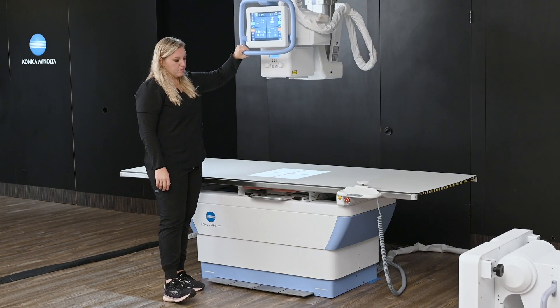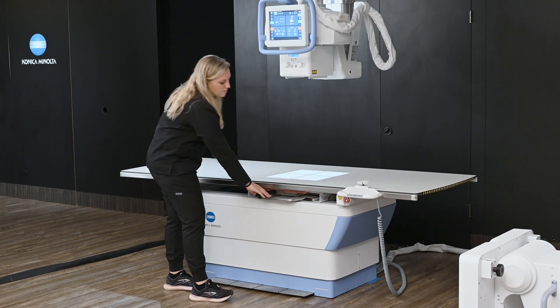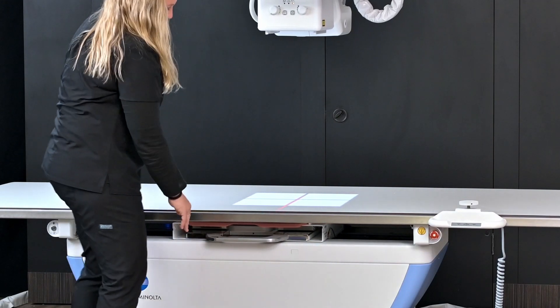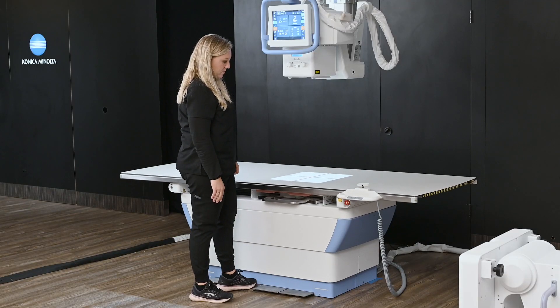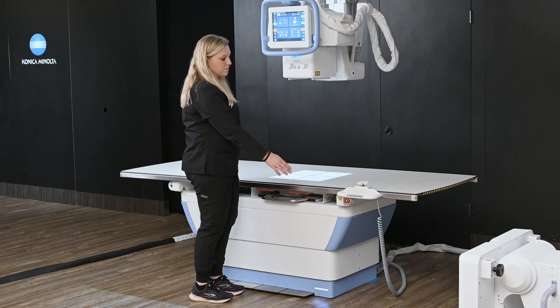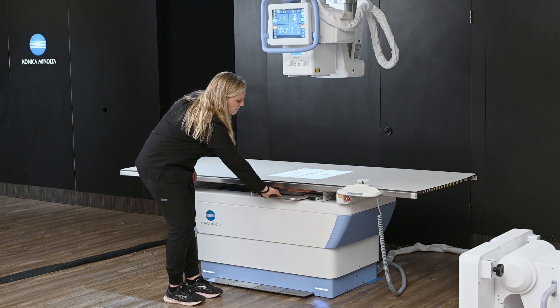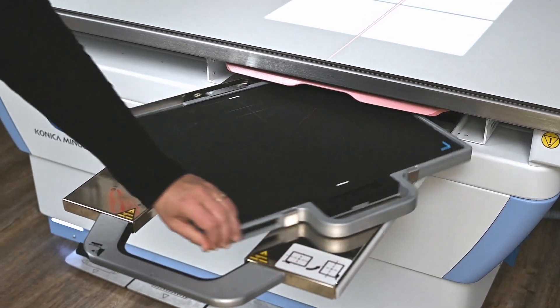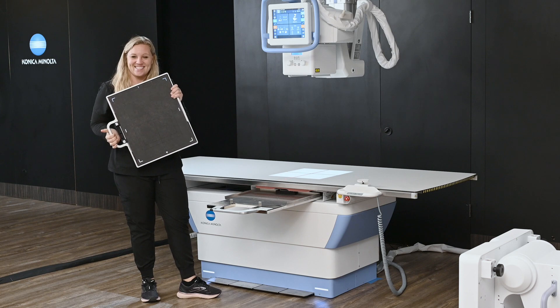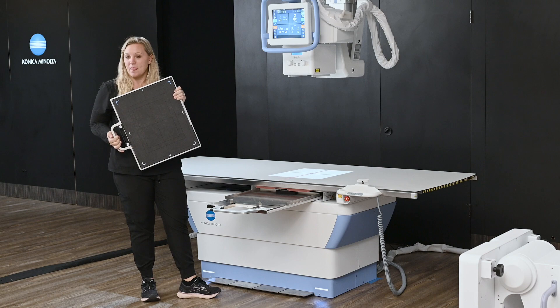Some of the great features of the Flex is the ability to track in many different ways. We can do tube tracking to the cassette tray, and we can also track the table to the tube — up and down in different directions. Another nice feature is table-side control, so we can operate the table from table side as well. The cassette tray can pull out and retain itself in landscape or portrait, and actually retain the entire enclosure to do extremities at the end of the table.